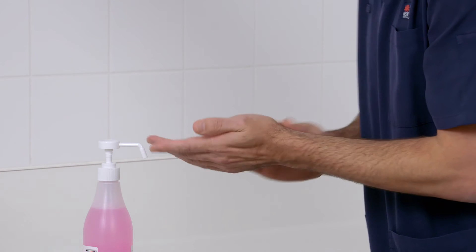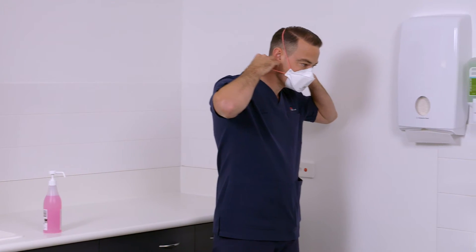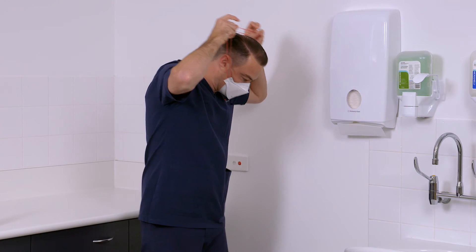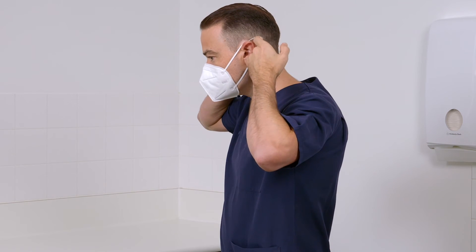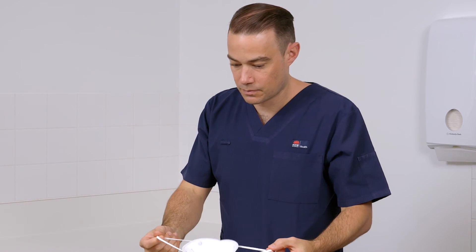For safe removal, first perform hand hygiene. Lift off the top strap, lean forward and remove the respirator by pulling the straps from the back of your head forward. Alternatively, if the respirator has loops around your ears, lean forward, carefully pull the loops without touching the front of the respirator, and remove the respirator away from your face.